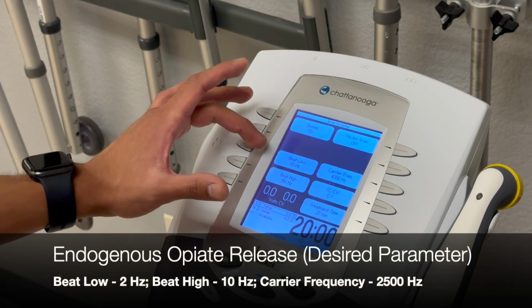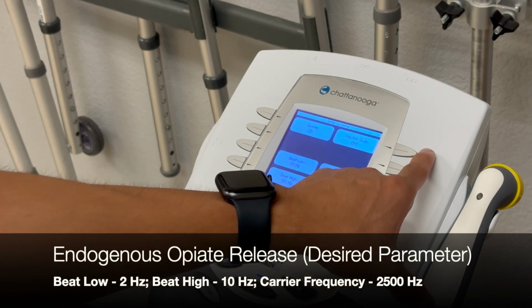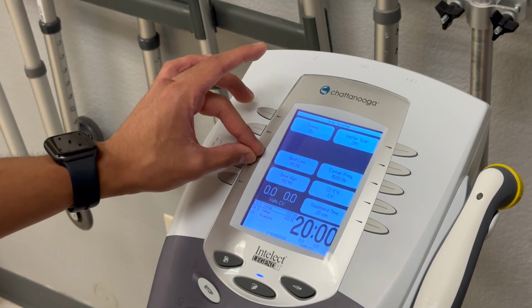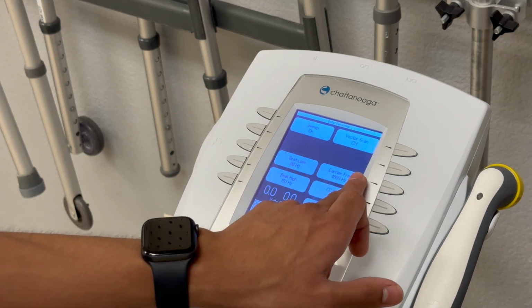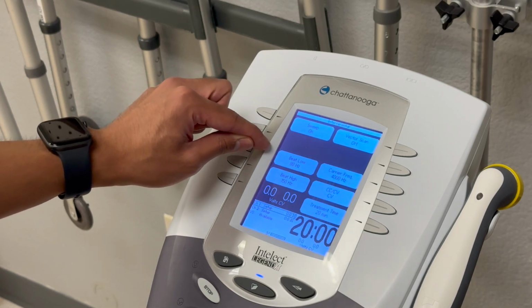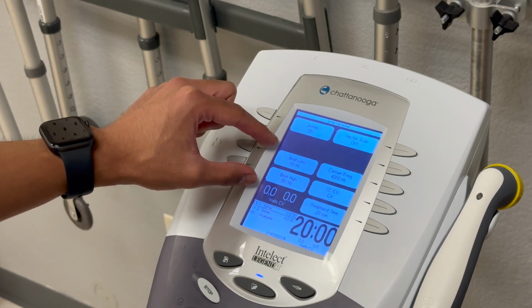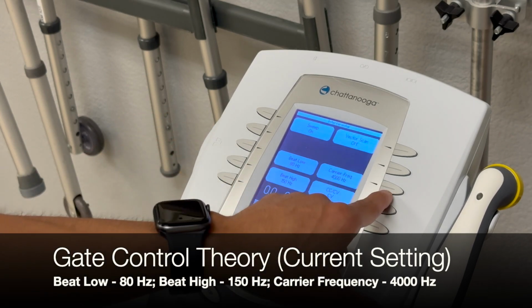With opiate release, we're going to be adjusting the beat low frequency, beat high frequency, and carrier frequency, and then we can adjust the vector scan if necessary. For opiate release, we're going to be aiming for a beat low number of 2 hertz and then a beat high frequency of 10 hertz. Carrier frequency will be at 2500 hertz, and we'll go ahead and change that. Right now, what we're seeing is the physiological parameters for gate control theory, where we have 80 hertz, 150 hertz, and 4000 hertz.